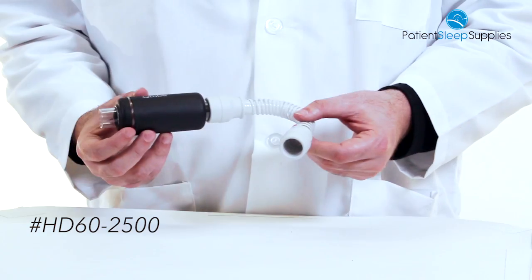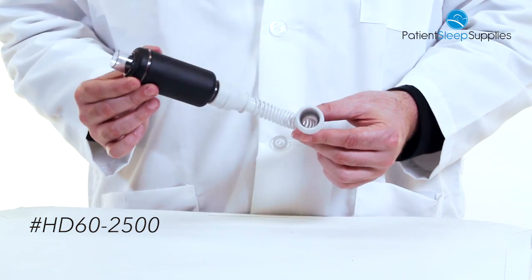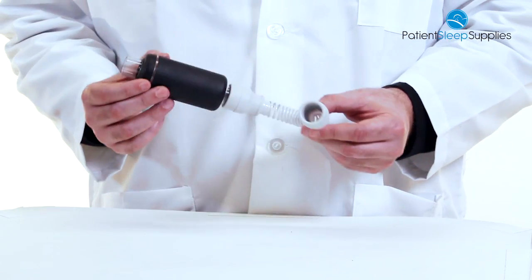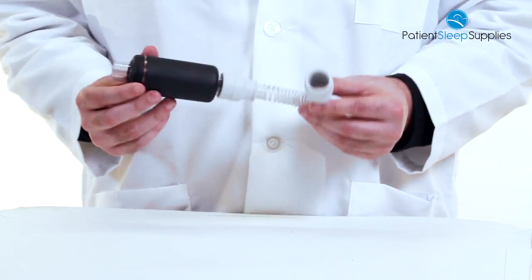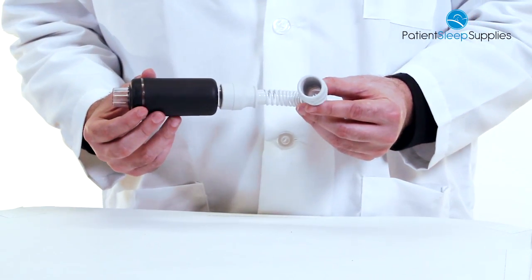Today we're looking at the Q-Tube Inline CPAP Muffler Kit. This will reduce the acoustic noise transmitted through your CPAP tube. This is great for light sleepers who get pestered by the sound of their CPAP machine.